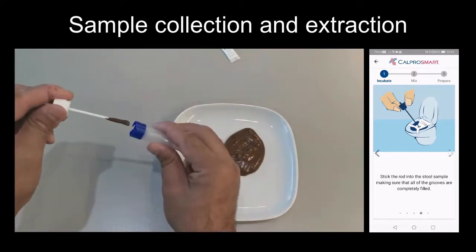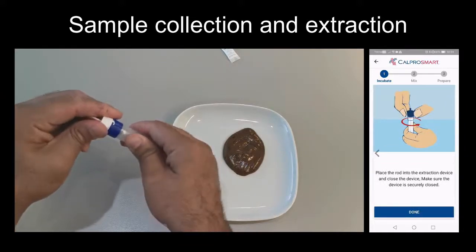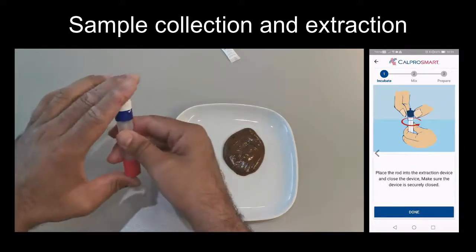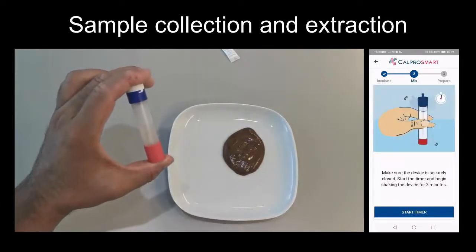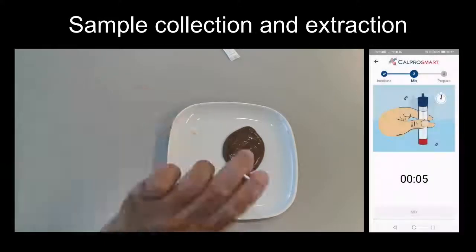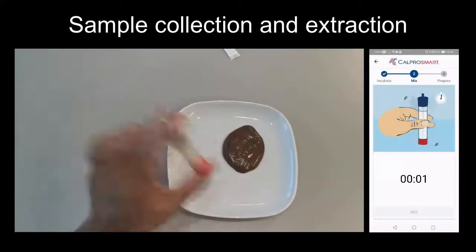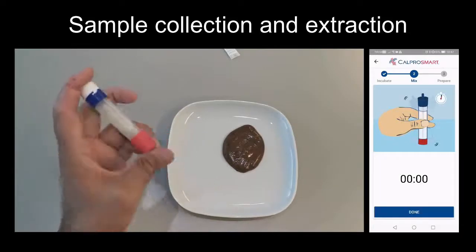Any excessive stool that is on the sampling rod will be scraped off when you put it back into the tube. In order to extract the sample, you need to vigorously shake the tube for 3 minutes. Make sure to start the timer and hold the tube firmly between your fingers. Once done, you can move on to the next step.